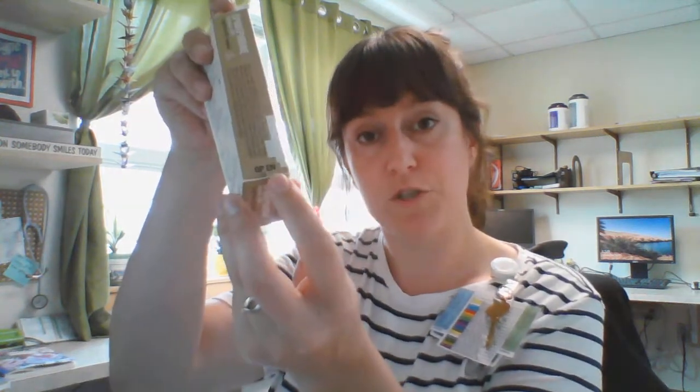It's just a quick trick, but always use your Braslow tape as your primary resource. Now, there are a couple of ways to open these pre-filled syringes. If you open at the top, a piece of cardboard holds part of the syringe in place and it won't come out — which causes frustration in a code. Always look for the cheat sheet that says open at the bottom; pop it open and everything slides right out.